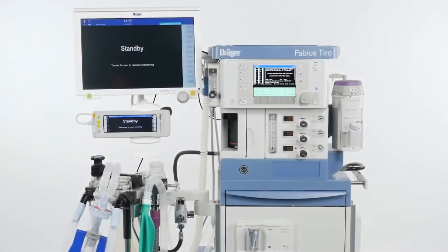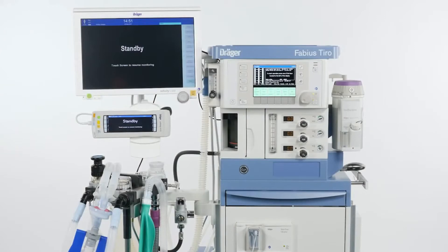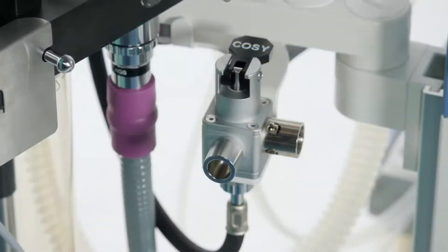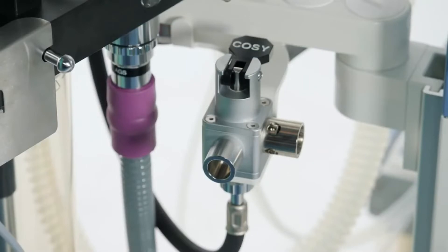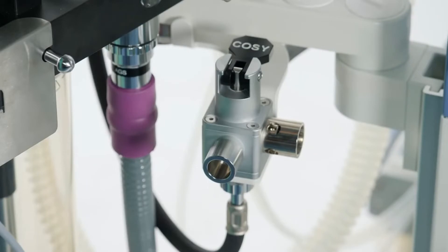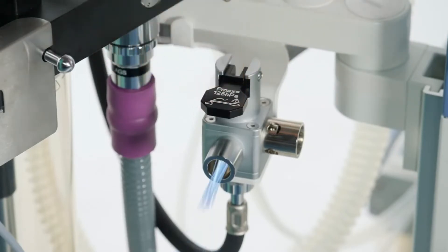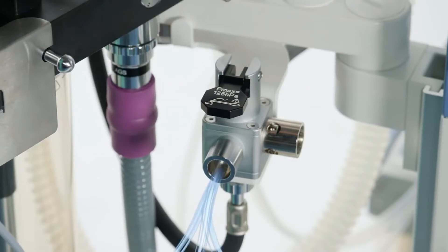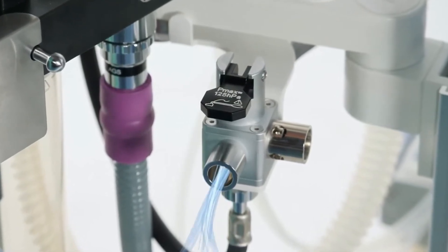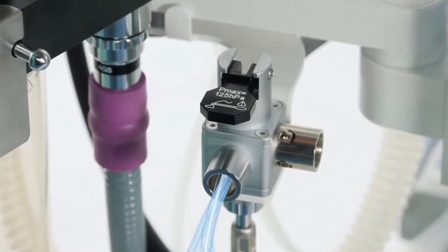We'd like to focus on the common gas outlet with switch and explain its features in detail. In order to divert the fresh gas flow to the compact breathing system COSY, the switch lever should be in the position labelled COSY. To divert the flow to the external fresh gas outlet, place the lever to the position labelled with an icon for open system. In this position, the ACGO features a built-in pressure limitation of maximum 125 hectopascal and is therefore labelled accordingly.